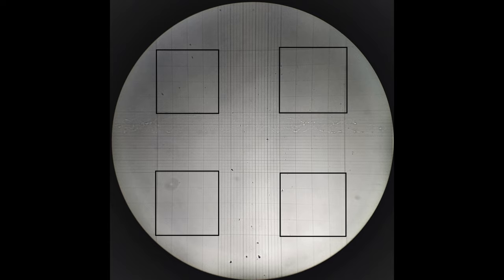Applying the margin rule or L rule of cell counting, count the WBCs lying inside of these squares and those lying on the borders of the lower and left side of each square. Do not count those cells lying on the borders of the upper and right sides of the squares.